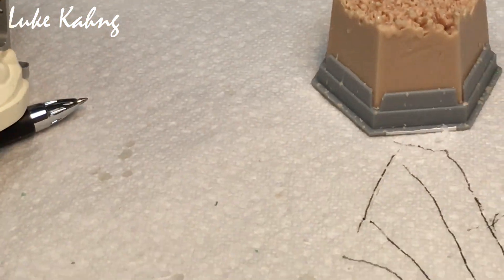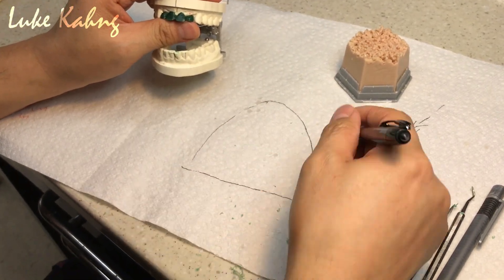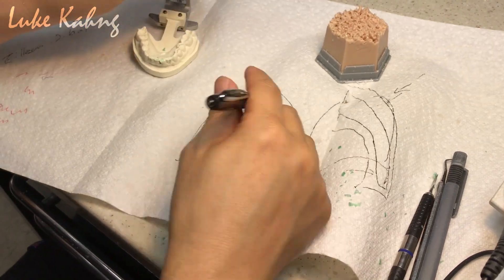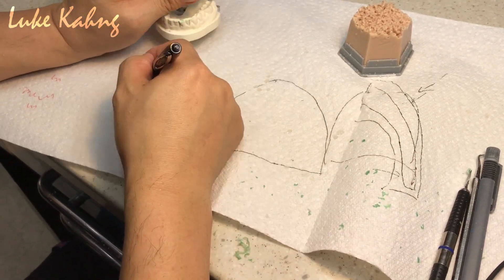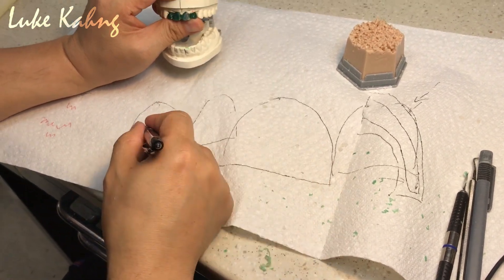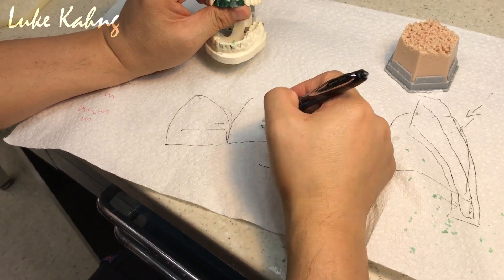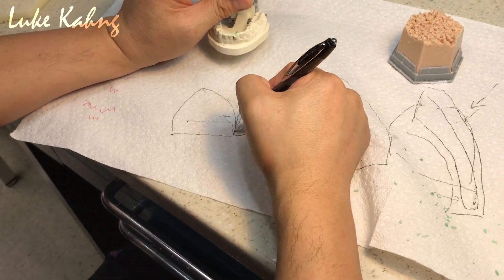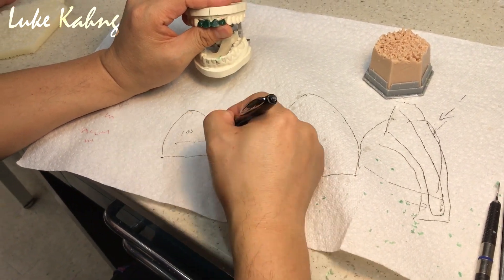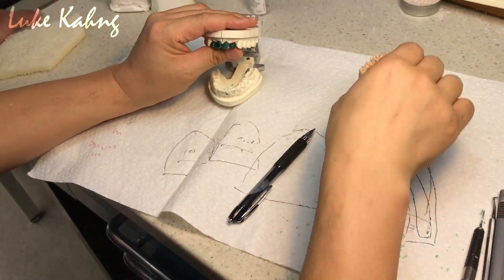So whenever I draw here, if central is too big, lateral is small. I have to draw here a little bit more bigger. You cannot make this as big, so I have to bring it in — which is what I did. Now this lateral I have to bring in more. So final golden proportion is 100%, here is 70 to 80%.